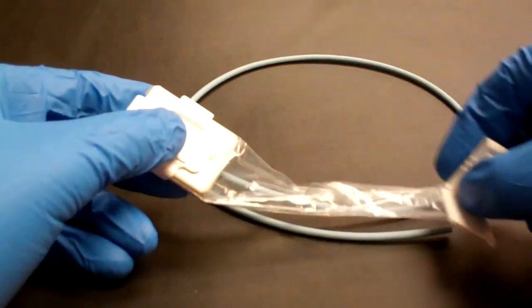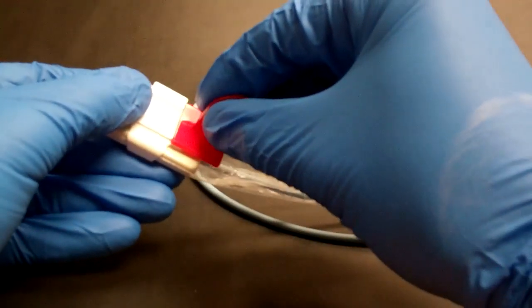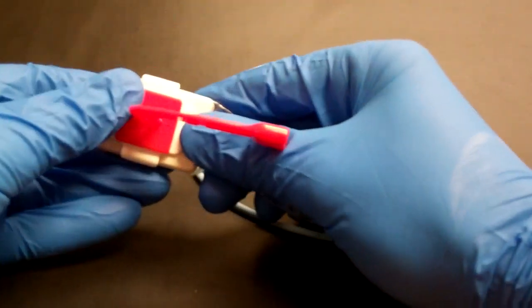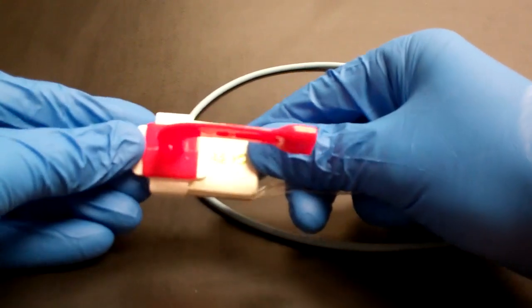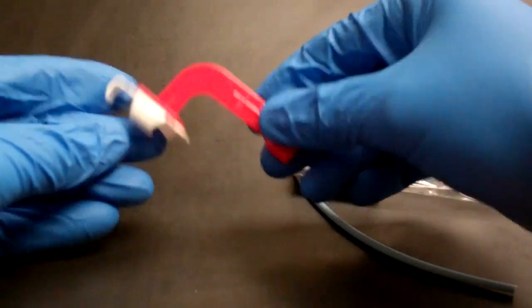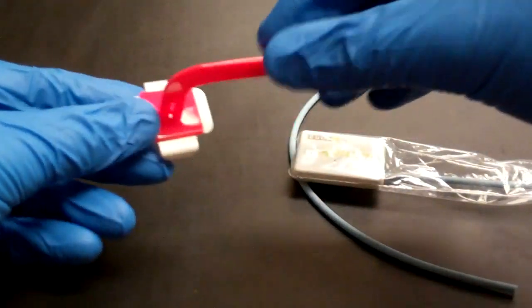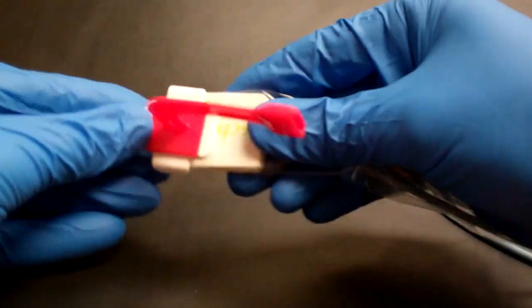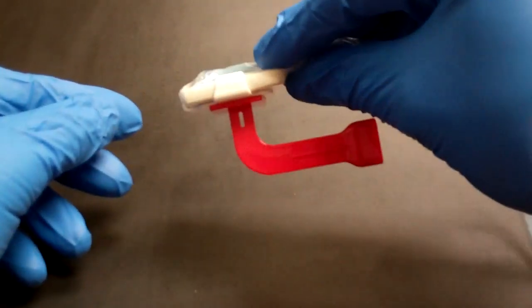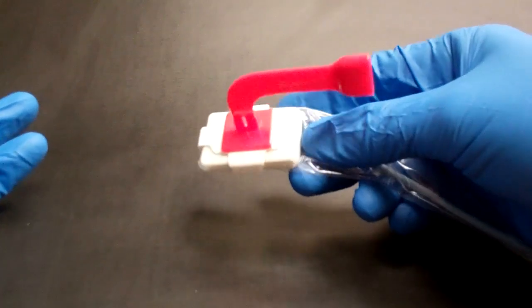Even though it is a two-piece system for bite wings, it doesn't mean you have to mess around with a bunch of parts. You can preassemble the bite wing pieces, so when you go to take a bite wing, it's just as easy as sliding this on. That's pretty quick and easy.